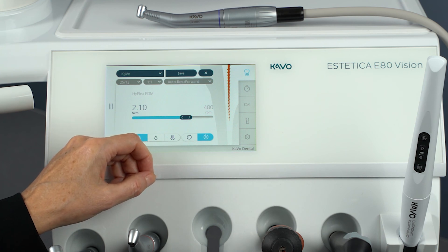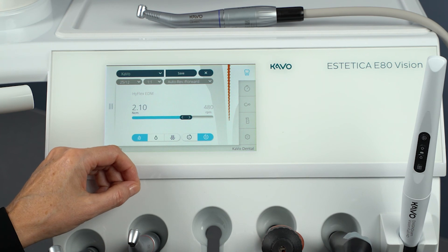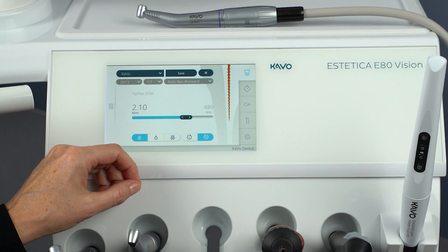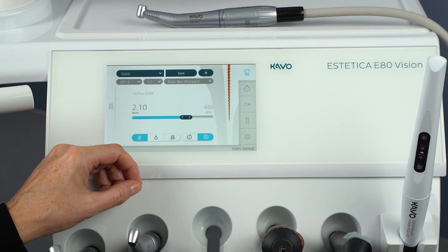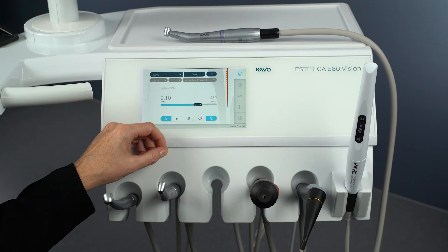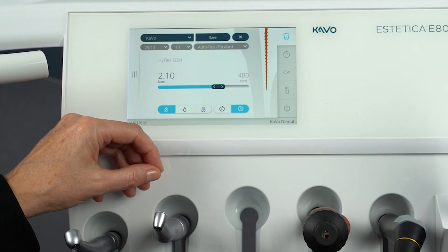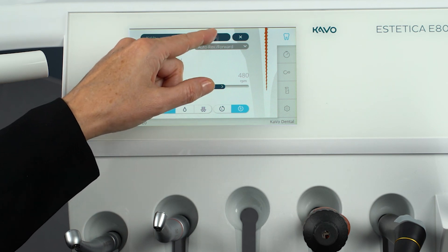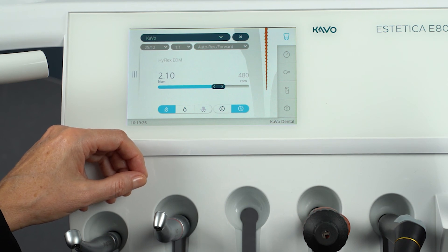Saving in profiles 1 to 8 is done with the Save button, and can be done after setting each individual parameter or after setting all parameters. In all torque modes, the direction of motor rotation can be reversed using the cross switch on the foot control. After all parameters have been adjusted and saved accordingly, the treatment unit is prepared for endodontic treatment according to your individual procedure.